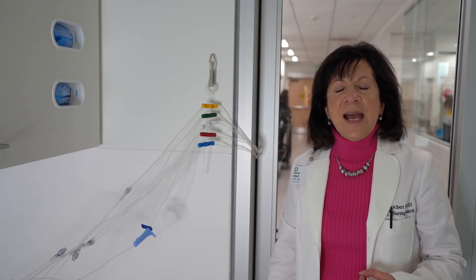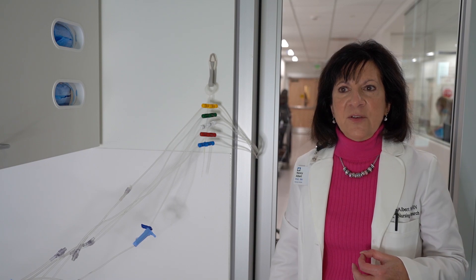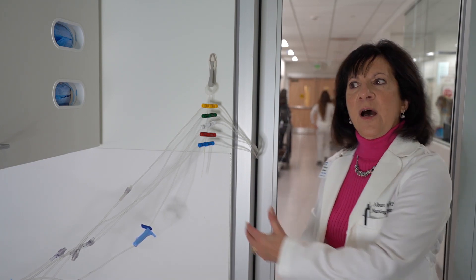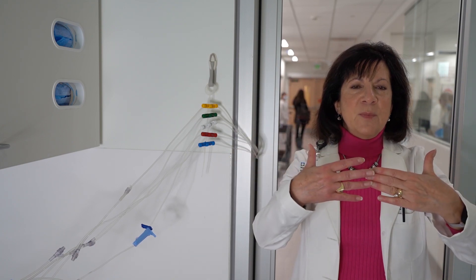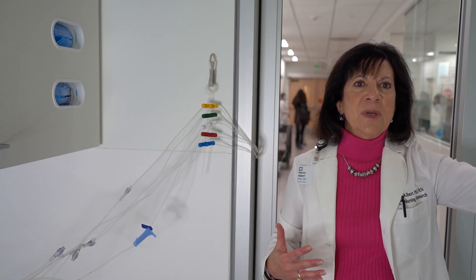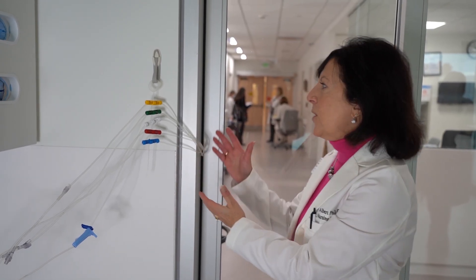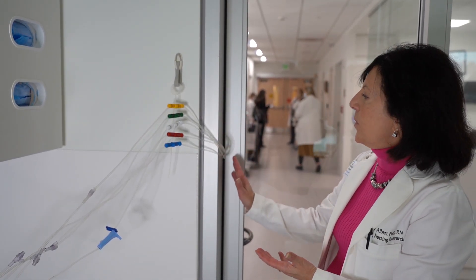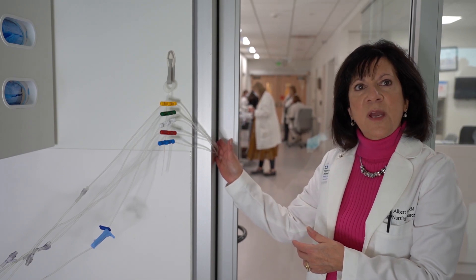The HiLine can come off of a ceiling or off of a wall. You would probably want to use the wall methodology if your ICU door closes close to the side wall. In some ICUs the door closes in the middle — if that's the case, you don't want the tubing draping from the middle of the room like a circus high wire to the middle of the door. To make that work, you would use a hook off the ceiling so that the HiLine could literally be above the heads of nurses and other health care providers in the room. In our example, our door comes close to a side wall and there is a little bit of rubber or furring on the wall, so the lines are going right through that.